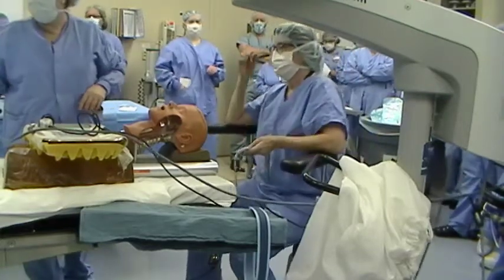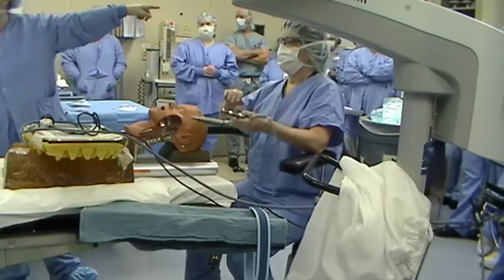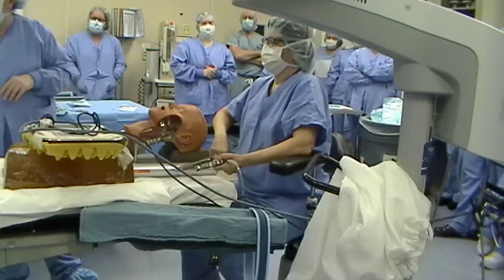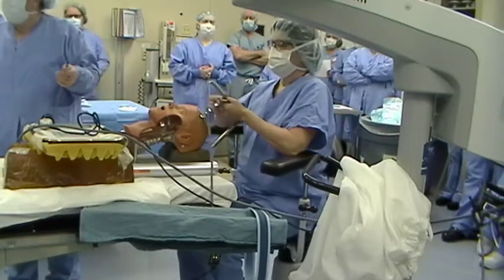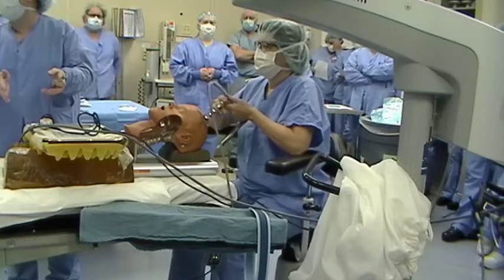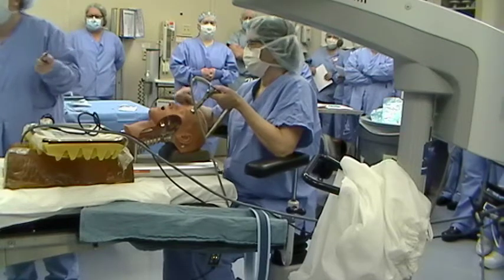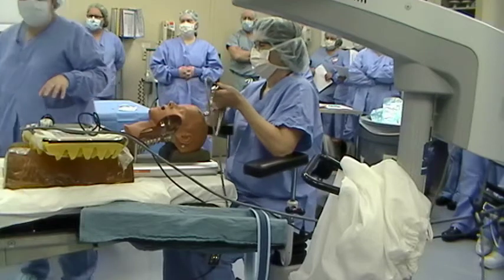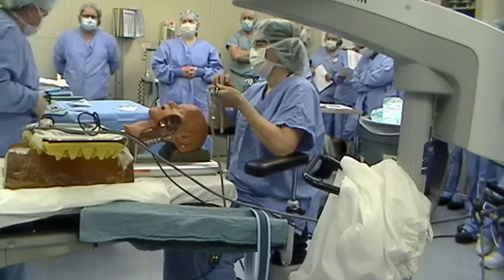These are the Linvotec cords. They're in specialty care's cart in the hall. When you open it up, they're kind of to the back on the right of the top shelf. Make sure you get the one that's got the blue tape. There's some that have yellow — you can grab that, but there's a little blue box next to it with adapters that say 'light cord adapters' with blue tips you can screw on instead to switch it out. She doesn't like the light cord that comes with the camera because it glares off the laryngoscope — the white light keeps her from looking inside.